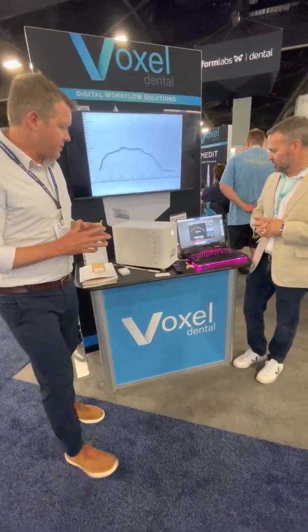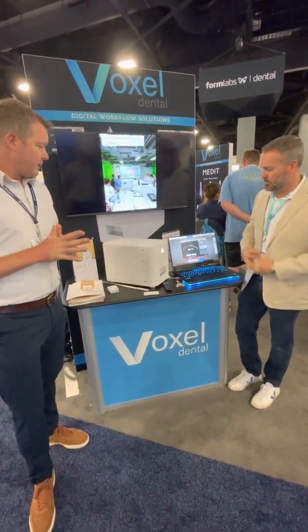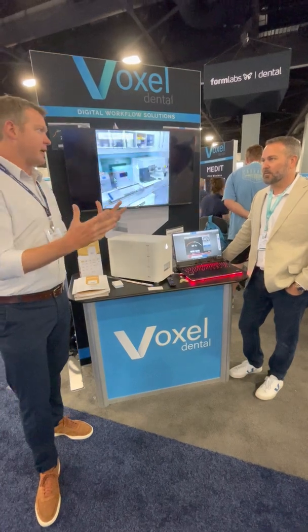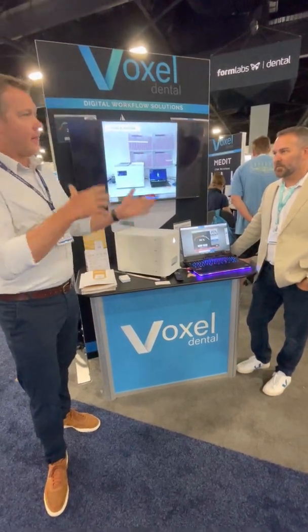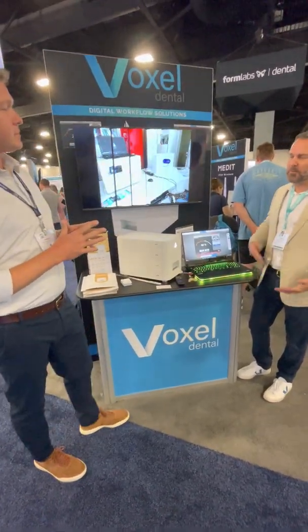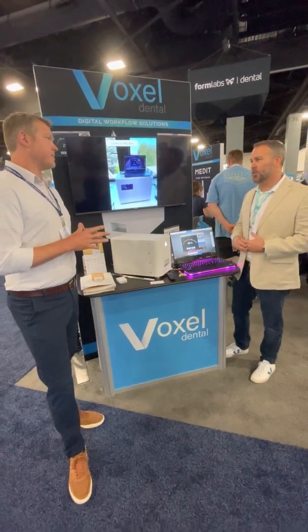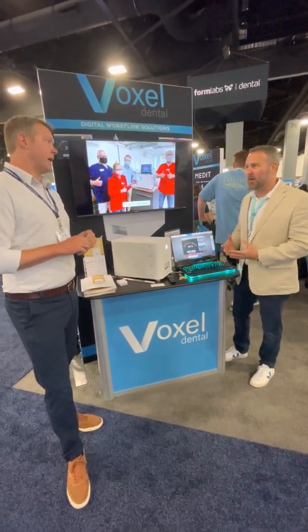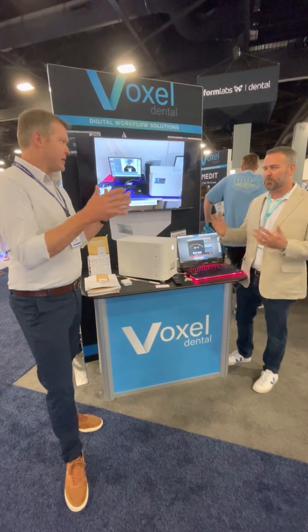So we're at 50% here, and yes, we'll see this when it comes off — that's pretty amazing. Those wires that conform so nicely to the dentition do such a good job at maintaining the alignment we've worked on and taking the individual variances of the anatomy, which is very hard to do by hand. We're super excited about it, and there have been studies done on it too. They started studies back in 2018 with St. Louis University — it's actually published in The Angle. They showed it's much more accurate than hand-bent wires, with hardly any issues with post-bond movement compared to the hand-bent wire category, which has quite a variance.